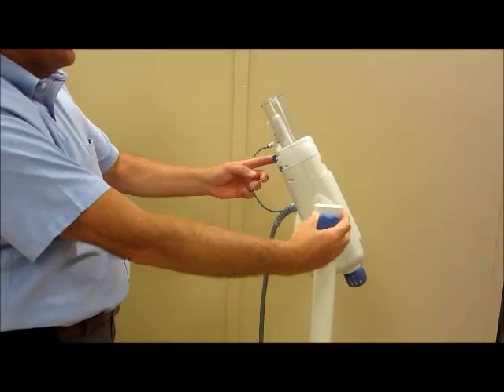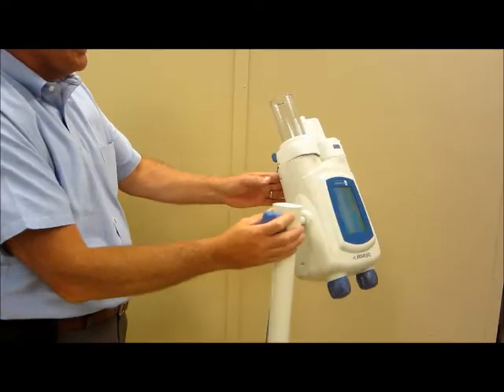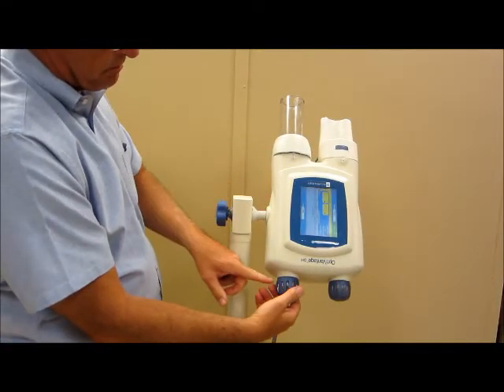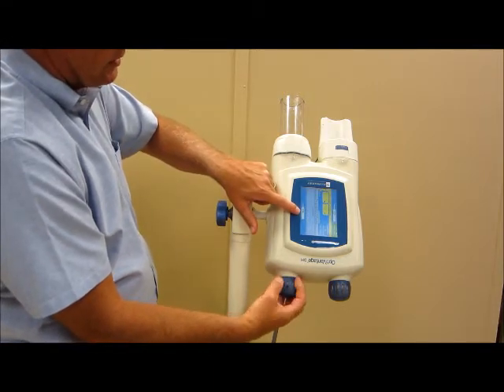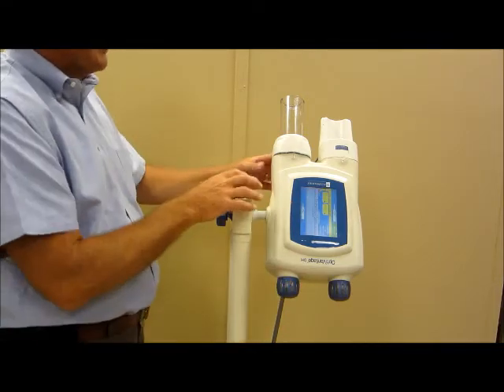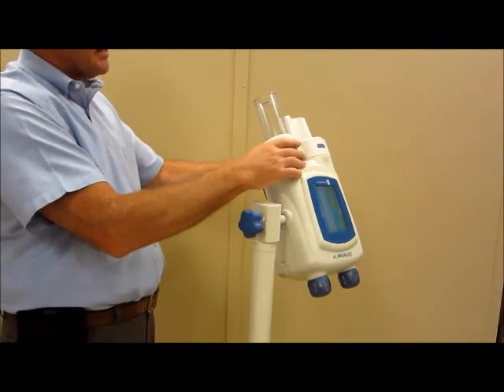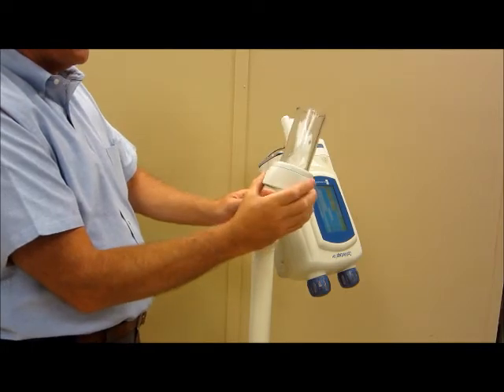You'll need to flip this lever to the unlock position, which will allow you to utilize the hand crank on the RAM to retract the RAM even further. This will be the 204 ml position. Once it's in that position, you can simply slide the faceplate off of the injector.